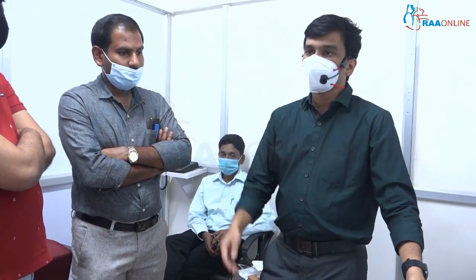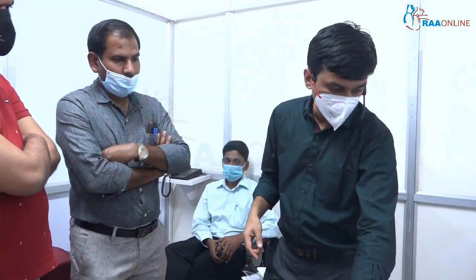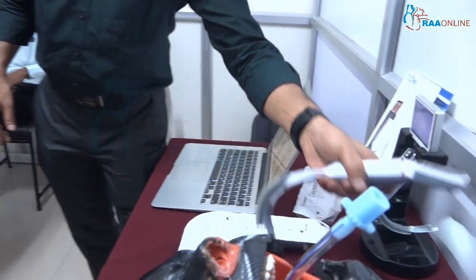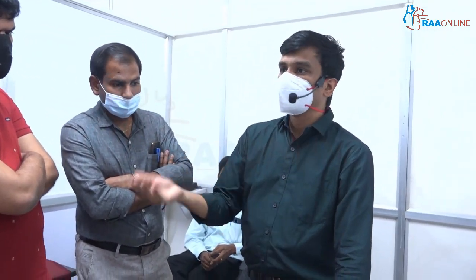There are three types of video laryngoscopes: the Macintosh type, which is your normal laryngoscope shape; the angulated type such as the GlideScope, which cannot be used for direct scopy; and the channeled type such as the King Vision, through which the tube passes through a channel. Many modifications have been introduced — for example, the GlideScope now comes with a Macintosh modification.